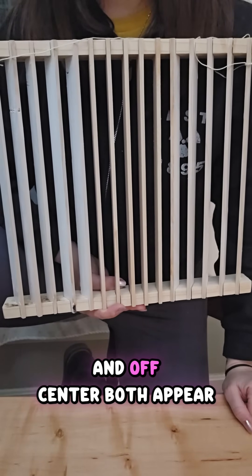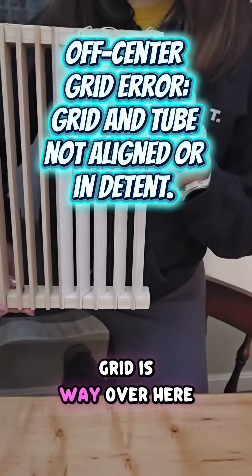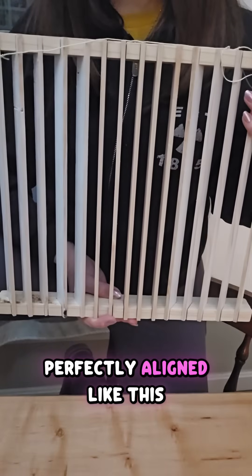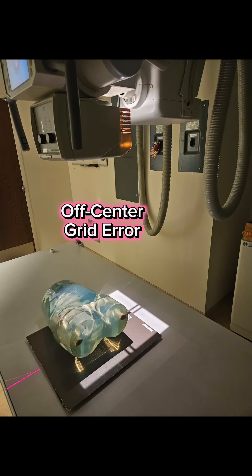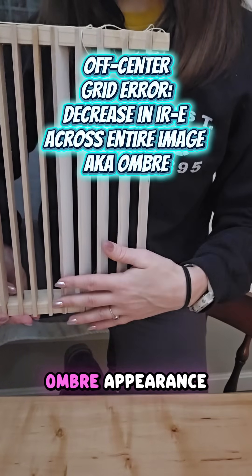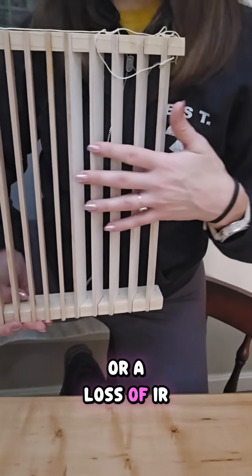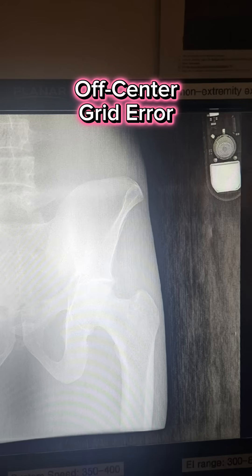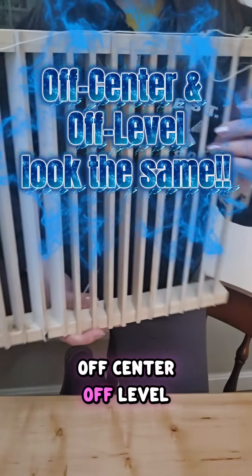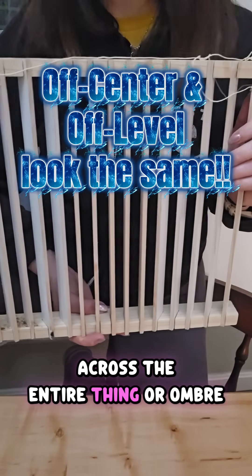Off-level and off-center both appear very similar. If I have off-center, that means maybe my grid is way over here — I'm still shooting at the patient here, but the grid is actually offset, not perfectly aligned underneath them. In that case, you again get an ombre appearance: black on one side, and then a gradual loss of IR exposure across the whole thing. So both off-center and off-level are going to show a gradual decrease in IR exposure across the entire image.